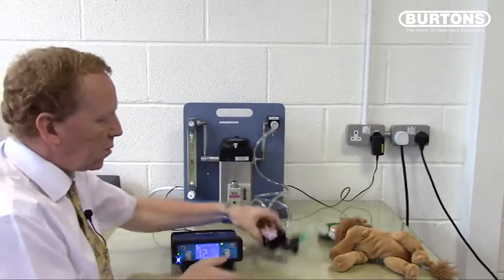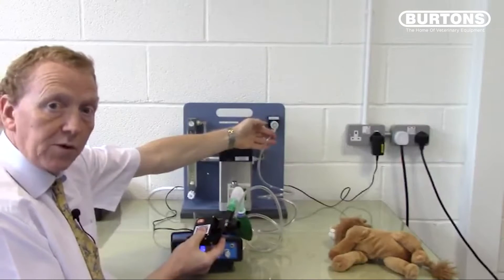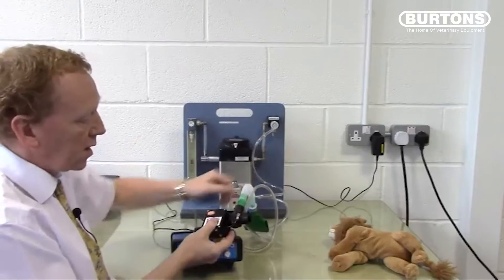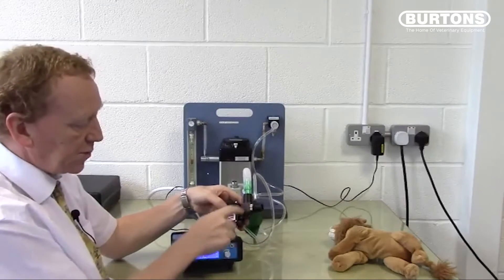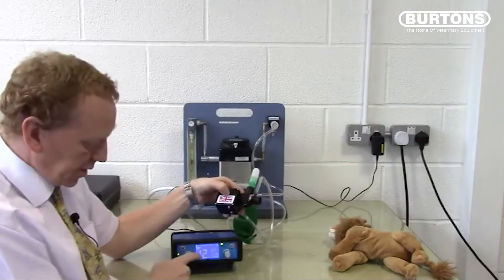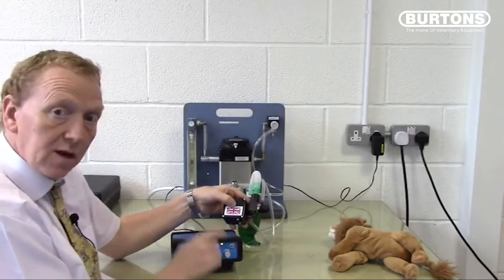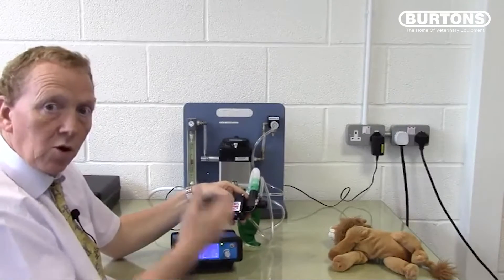The unit is very simple in concept. We have a T-piece circuit with incoming gas from a fresh gas outlet from your anaesthetic machine, into this special T-piece off to the patient, and then off to the waste and recovery. When we go to ventilate mode, a little solenoid closes off the exit port. Incoming gas then inflates the patient's chest until we reach the set pressure. When that pressure is reached, the valve opens and allows the animal to breathe out passively through the exit port. A timer then controls how long the valve stays open, and when it closes at the end of the expiratory time, the whole process repeats.